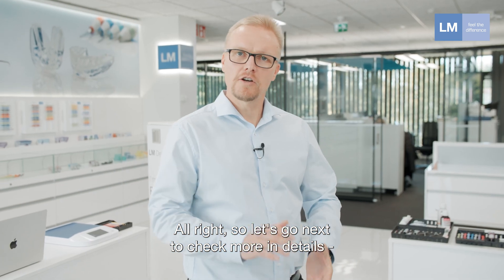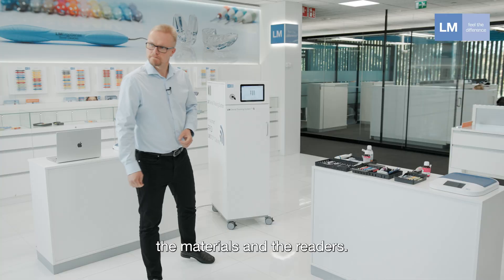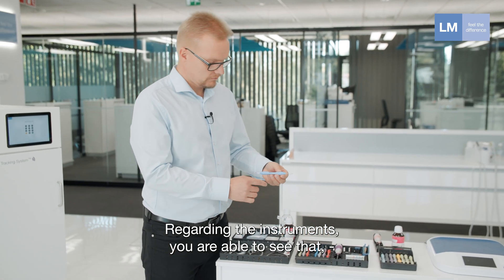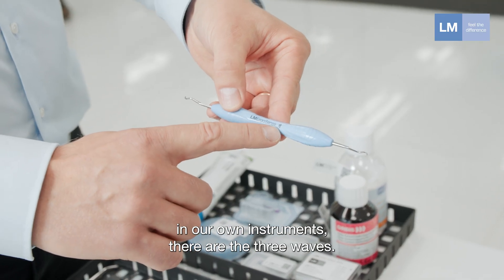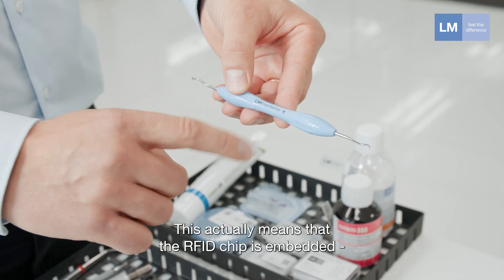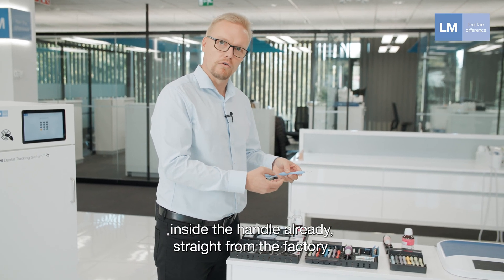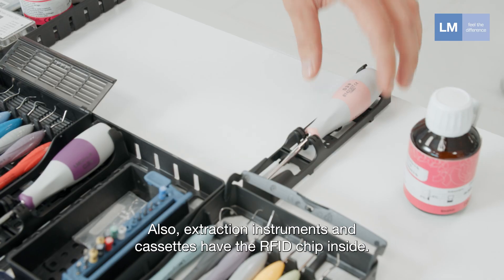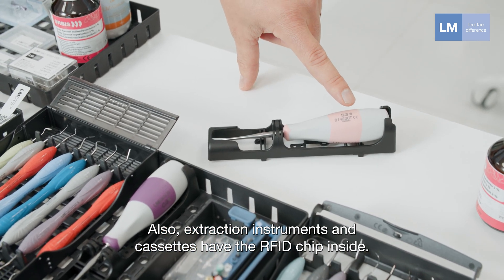Let's check the materials and readers in more detail. Regarding the instruments, you can see that in our own instruments there are three waves. This means that the RFID chip is embedded inside the handle already straight from the factory. Extraction instruments and cassettes also have the RFID chip inside.